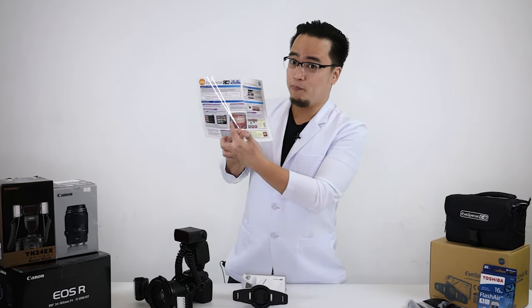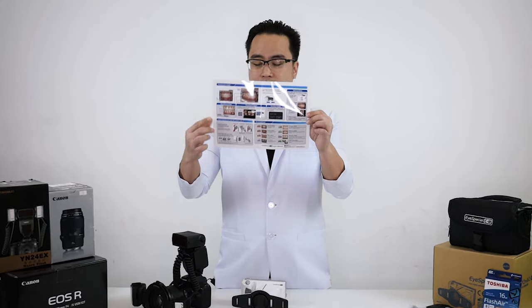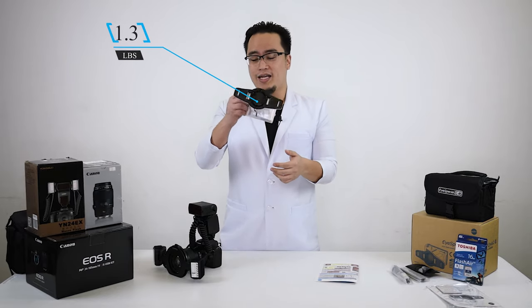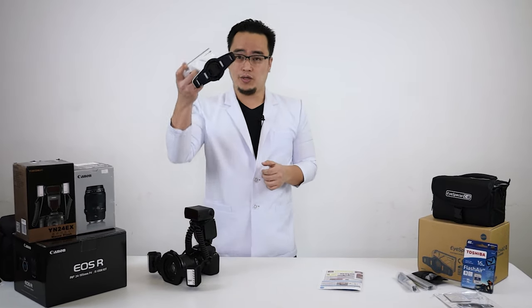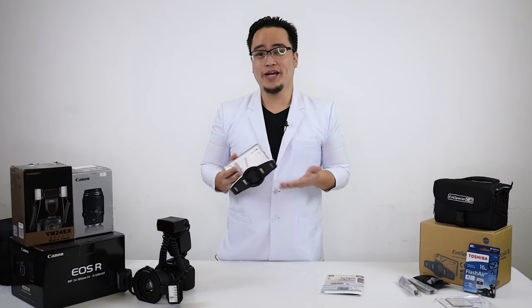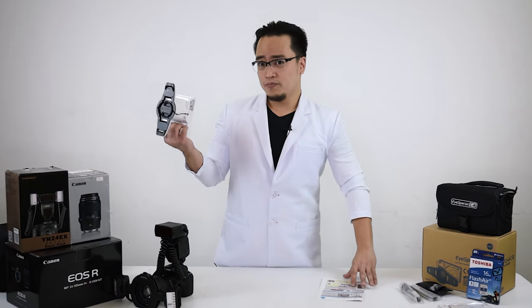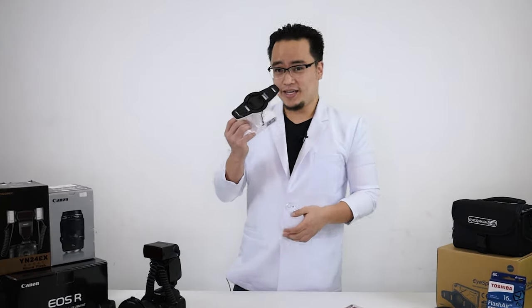What I like about it most is it's all picture-based. You can follow along quite easily because there are a lot of photos for each step. Another advantage is the size and the weight — very light, very handy. If you have female assistants or female dentists in the office, they will surely appreciate this because you can do one-hand shooting since the weight is not going to be an issue. The Shofu Cam allows for great ease of use: it's easy to teach your assistants, easy to teach fellow dentists in your practice, and easy to relearn yourself. If not, you can refer to the quick start guide again because it's all there.